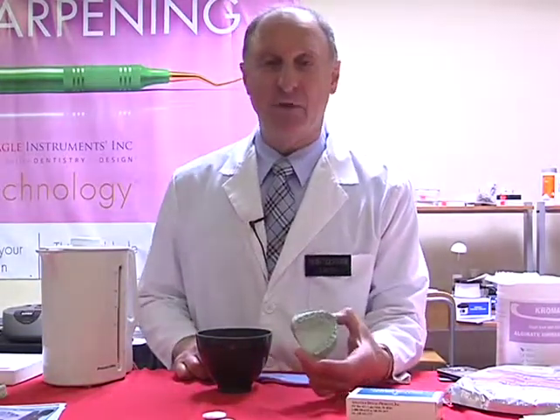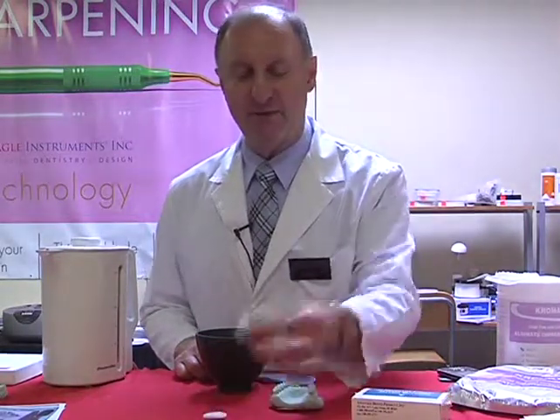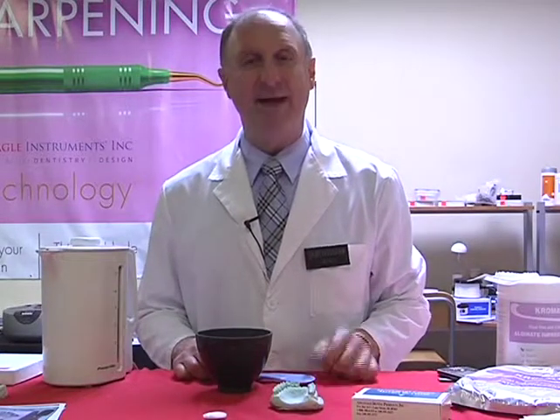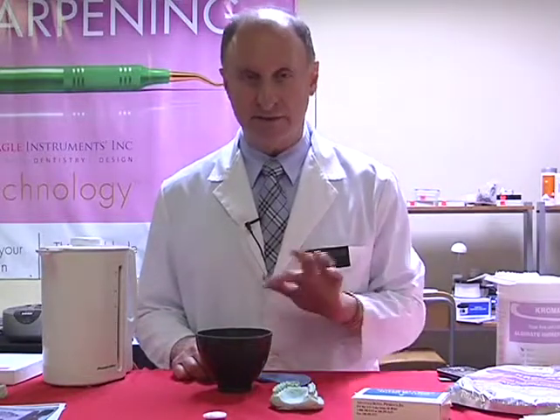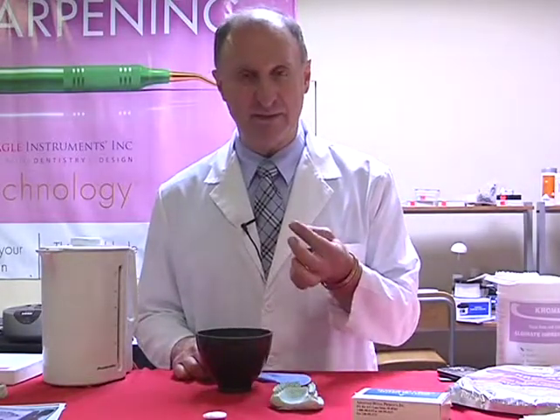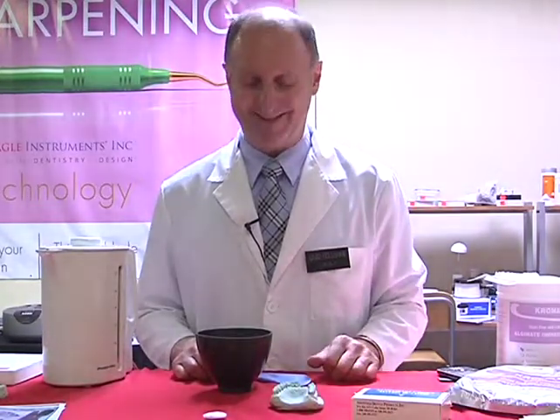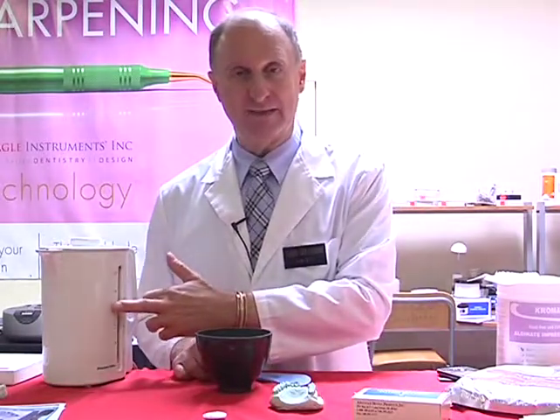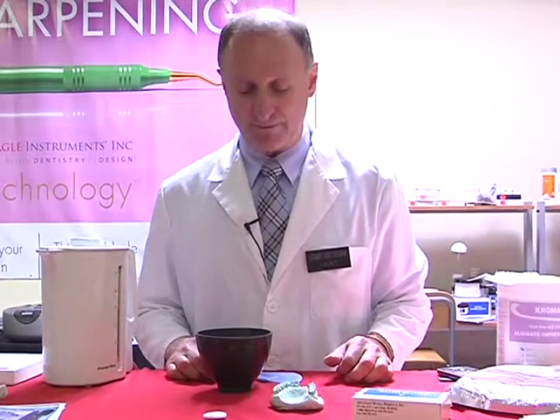So, normally we'll be using this directly in a patient's mouth. I would take 3 buttons, apply 3 buttons into our mixing bowl, and they sit in there for 15 seconds. How do we know? First off, the temperature of the water is very important. It should be in between McDonald's and Tim Hortons, about 150 degrees. The best thing I find, if we're not using one of these guys over here, an electric kettle to warm up our water, is to use a microwave.